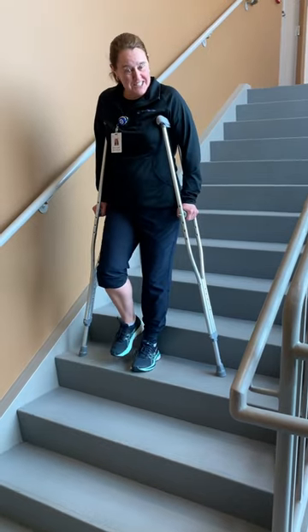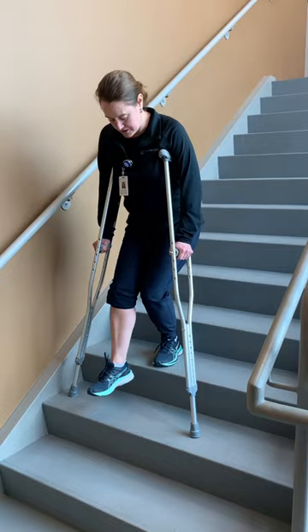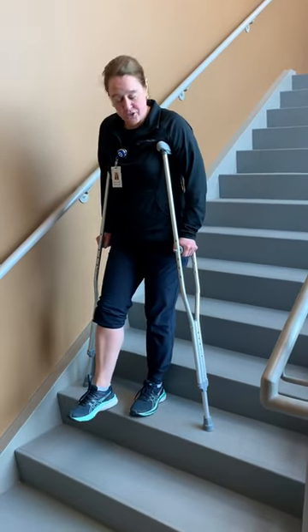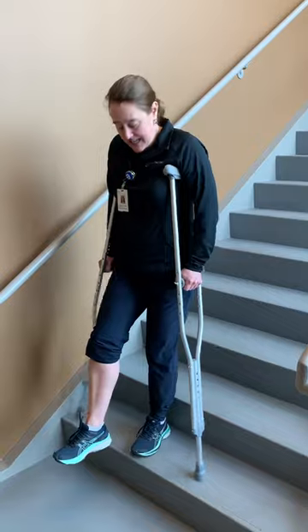Come down the stairs without putting weight through your operated leg. Crutches will go first and then hop down onto the good leg. Crutches, good leg.